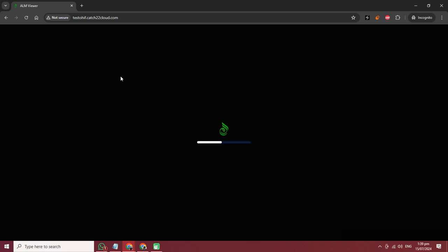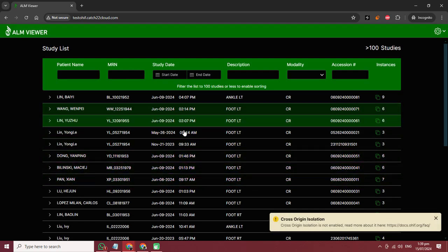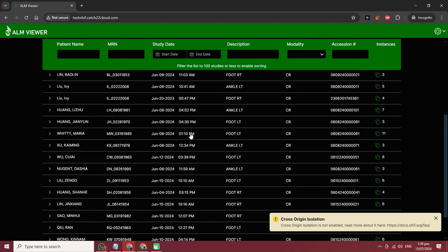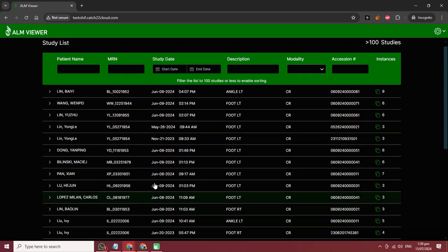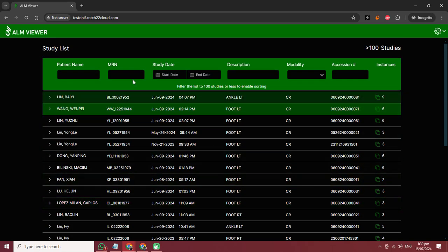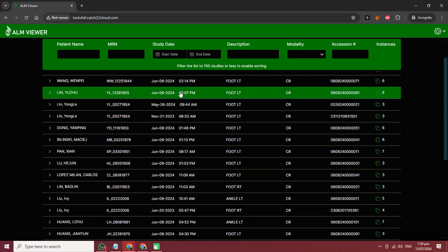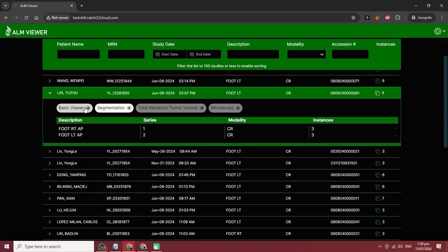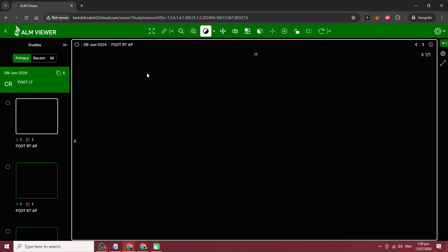It's loaded. We have customized and developed this series, so these are loading from the system I have integrated. This basic view - we have changed some colors but all these things are the same.